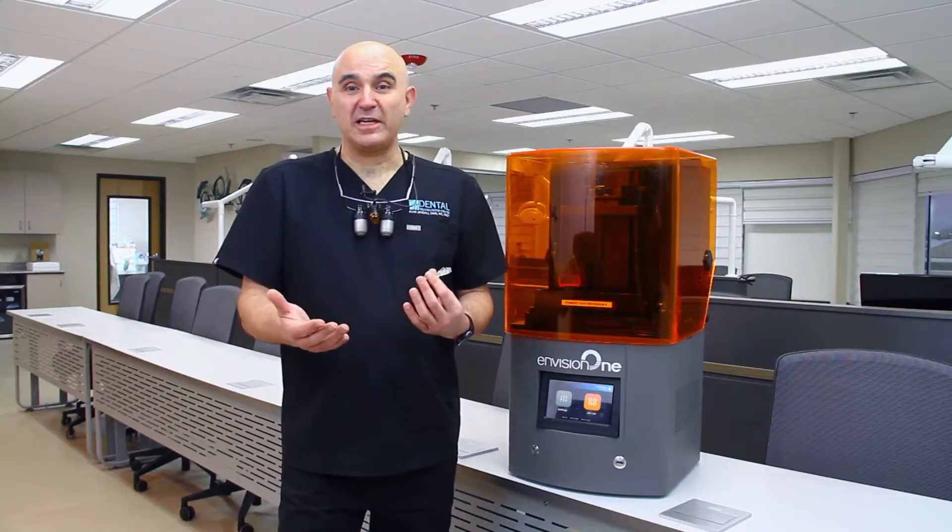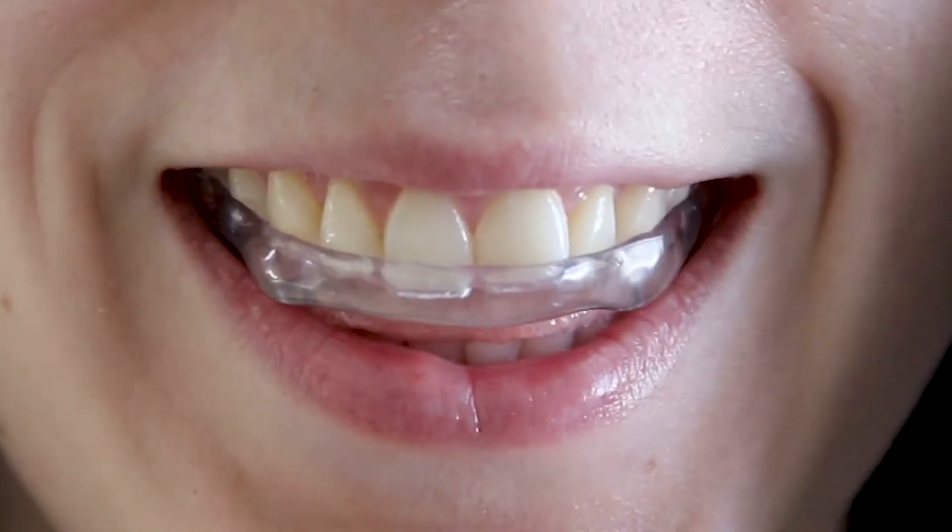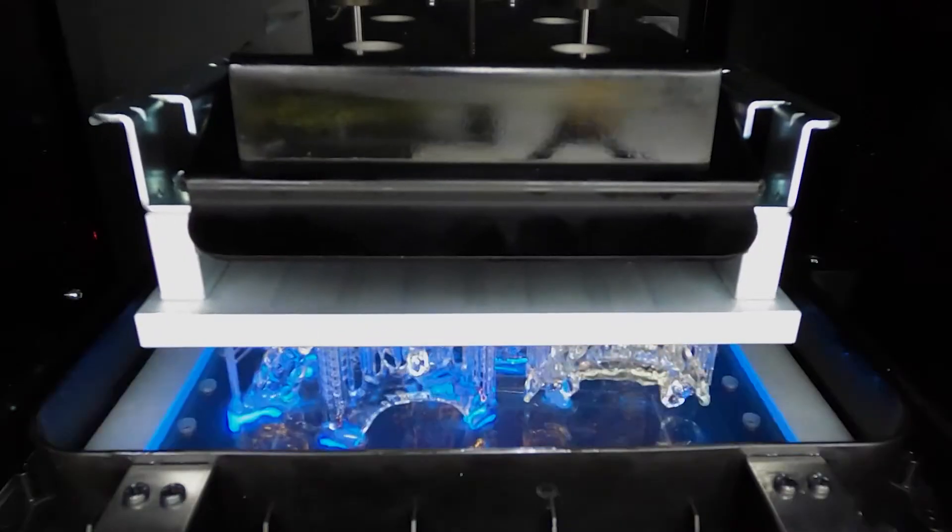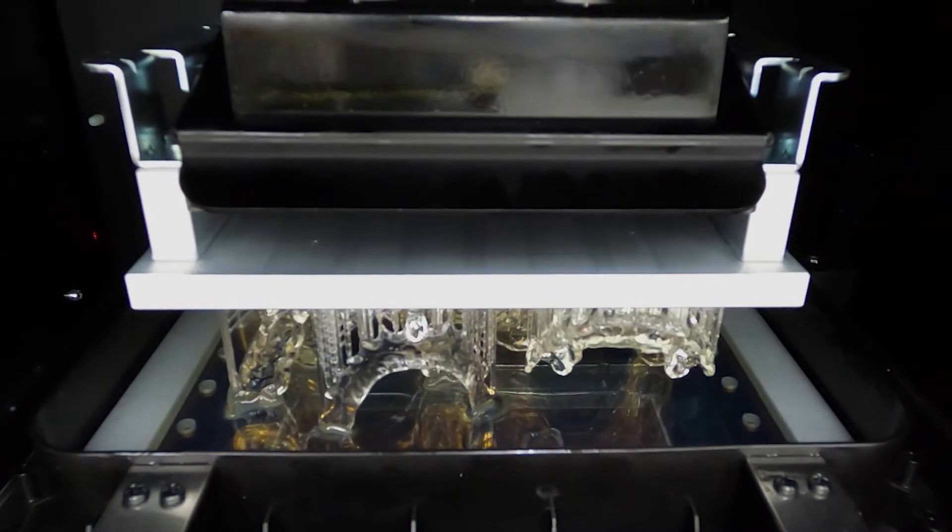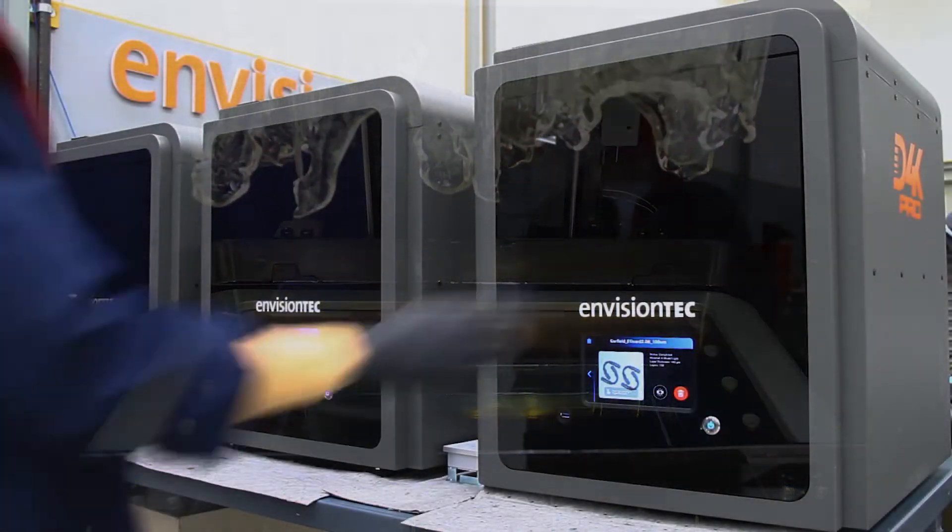It's almost like water, and with very minimal finishing you can have a part that's functional and works in the mouth. I was really surprised how close you can get a printed part that looks and feels like a processed acrylic resin splint. This will come just as close to it, if not even better.